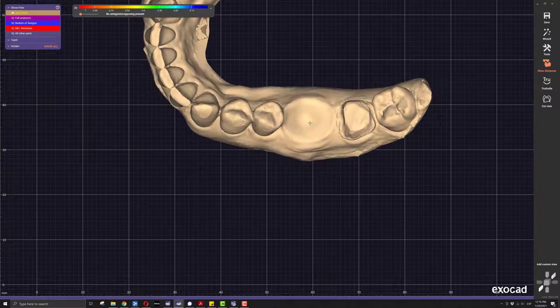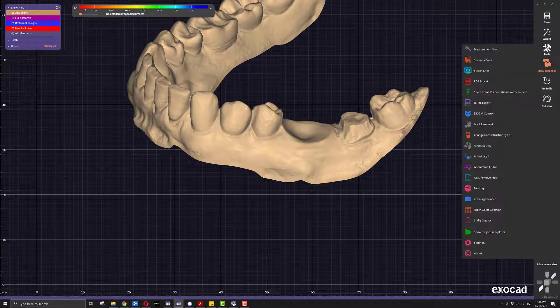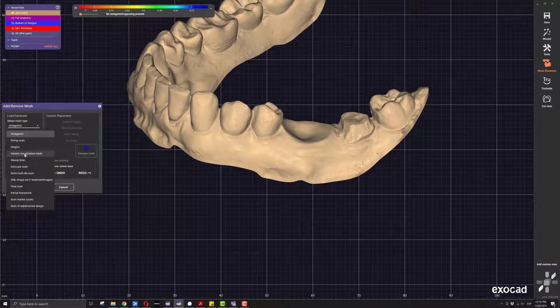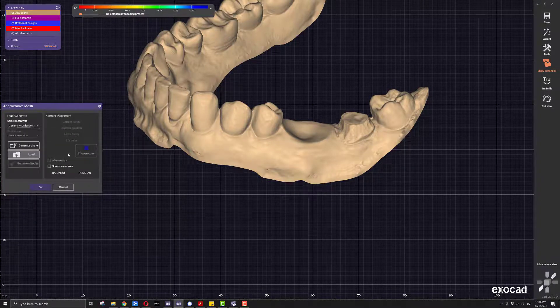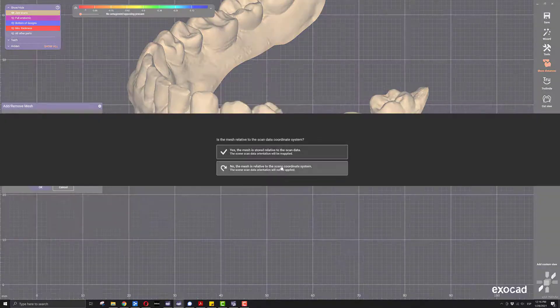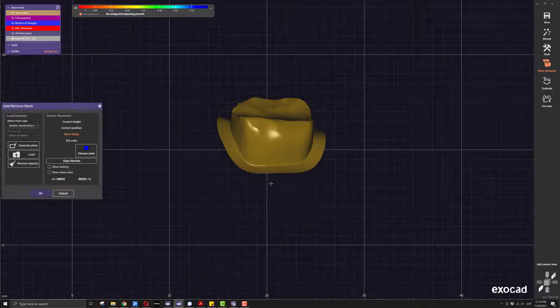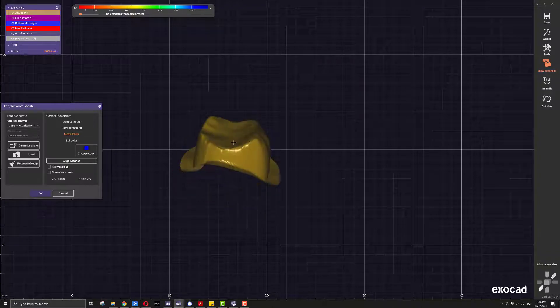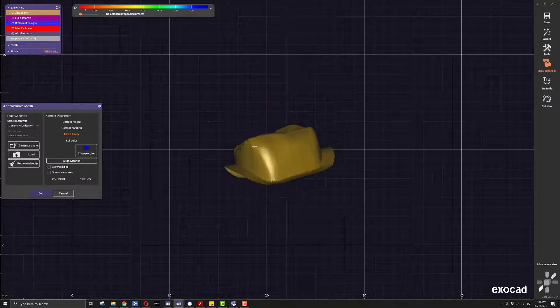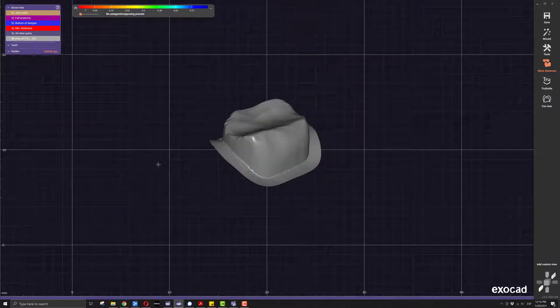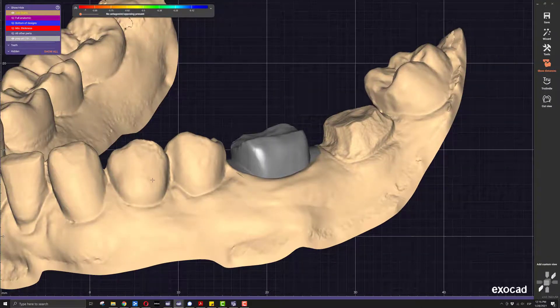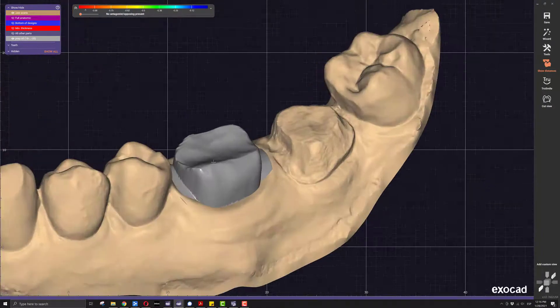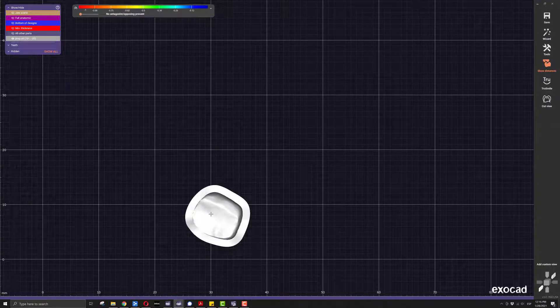Now that we have our extraction, we go here into tools, add or remove a mesh, and then import a generic visualization mesh — we are going to import our prep. There we have our preparation. Notice one thing: our mesh here has a bright yellow on the bottom and dark yellow on the top, which means our triangles are inverted. In order to fix this so that everything has the same direction, the occlusal surface of what we are looking at is the right direction for the scan, but not for the prep, and over here it is the other way around.